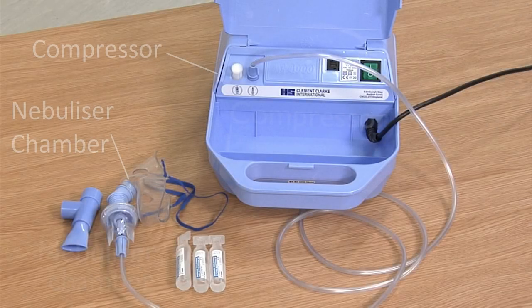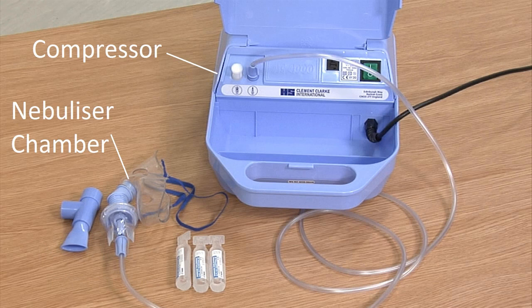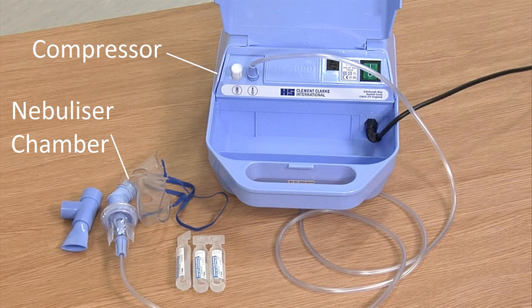This is a typical nebuliser which might be found on the wards. It has two main components: the compressor and the nebuliser chamber, and can be used with either a mask or a mouthpiece.